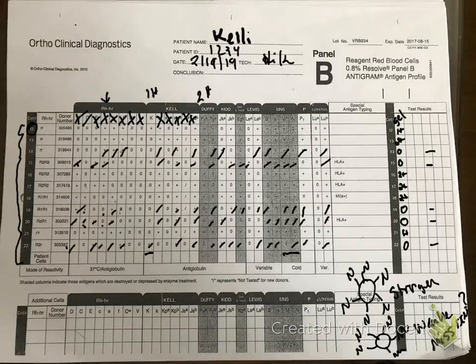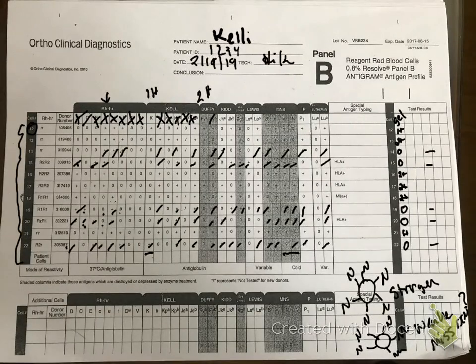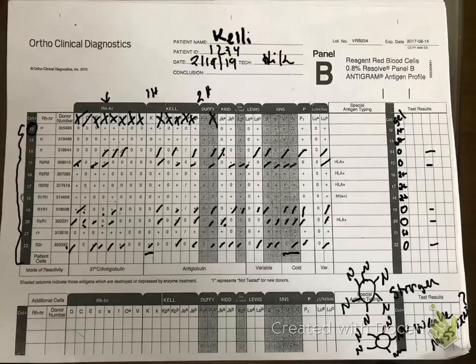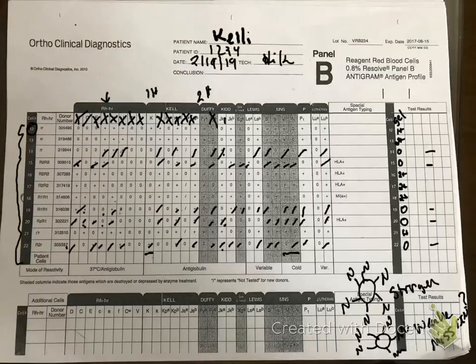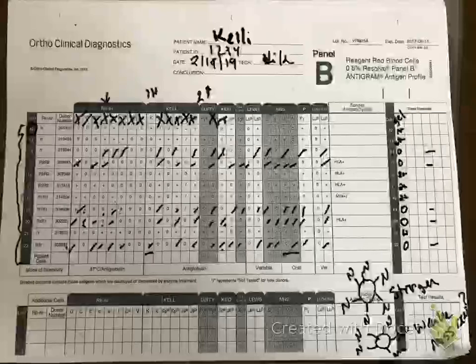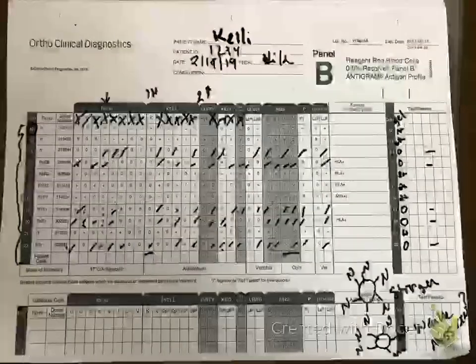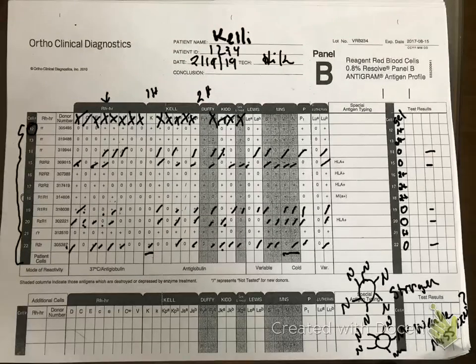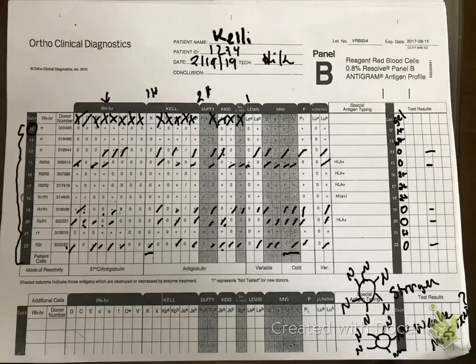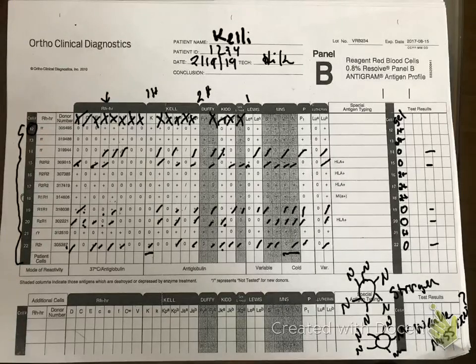For Duffy A, I need two homozygous to rule it out and I don't have them — flagged. For Duffy B, I have four to five homozygous — cross it off. JKa has two homozygous plus a heterozygous — cross it off. JKb has two homozygous and one hetero. XGa has two rule-outs. For LEa, I only have one, and this is typically low frequency, but I'll note it.